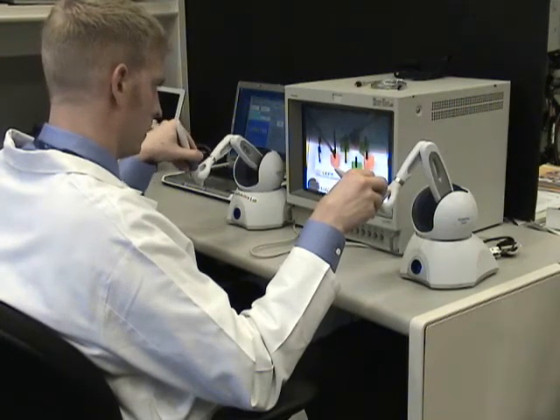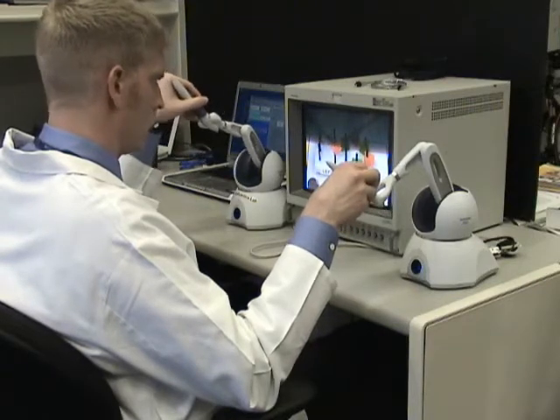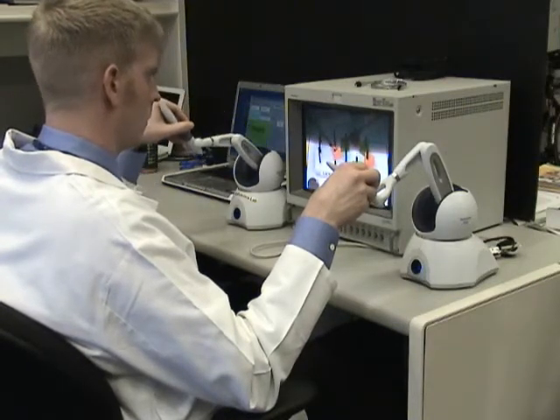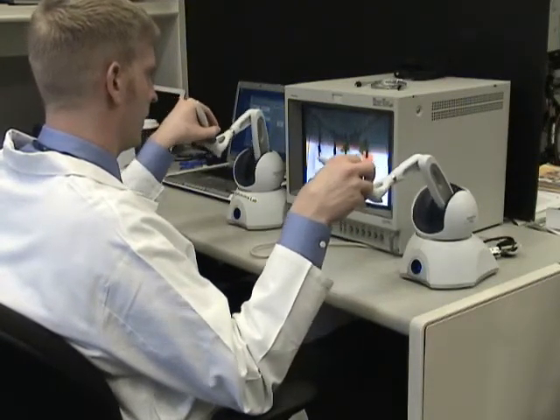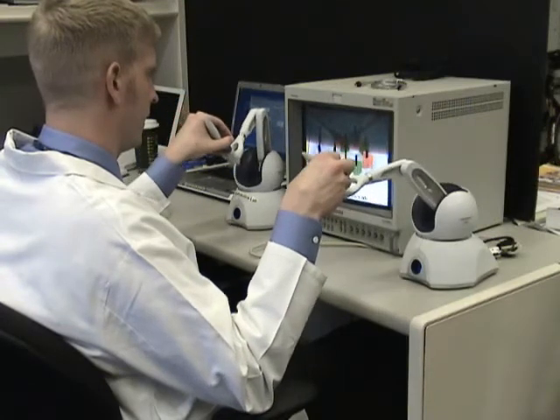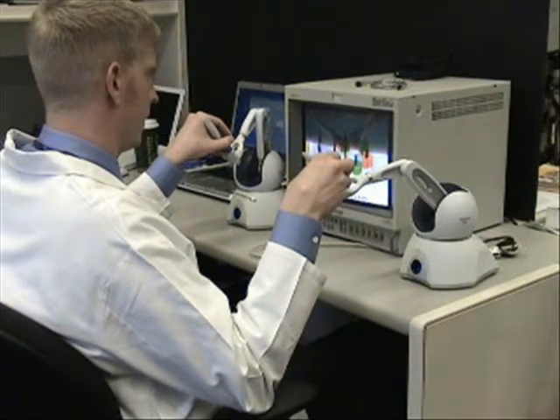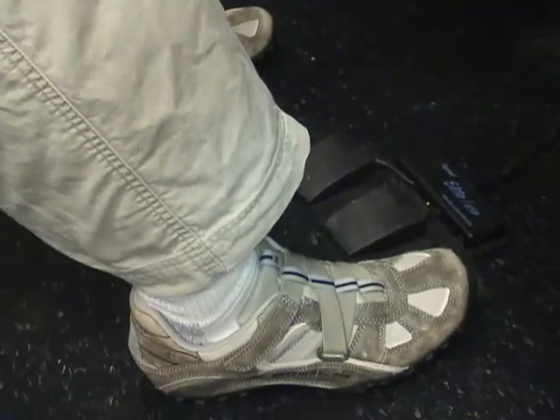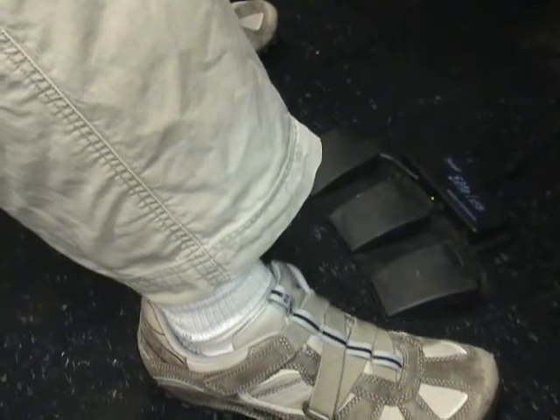Be aware that one must have control of the Omni styli before pressing the foot pedal, and must release the foot pedal before putting down the styli. Occasionally, one will take his or her foot off of the pedal but the system will remain in the pedal down state. Simply press and release the pedal and verify your ability to index before releasing the styli.